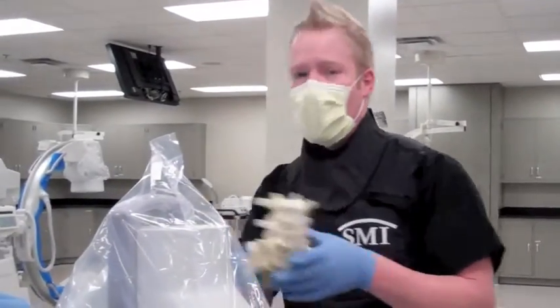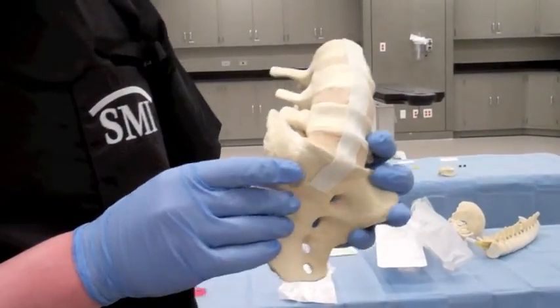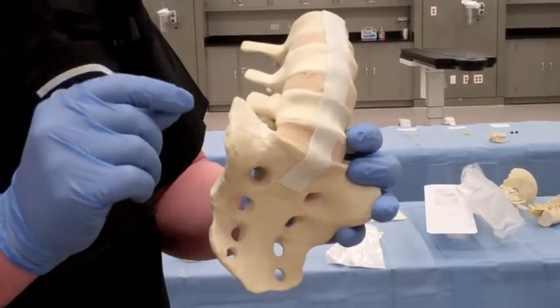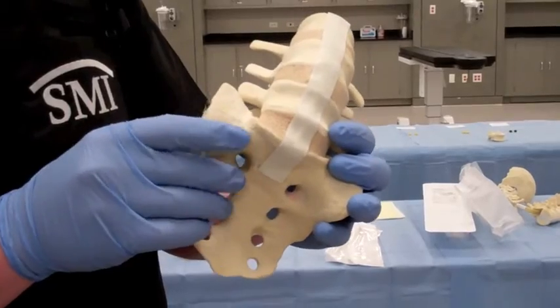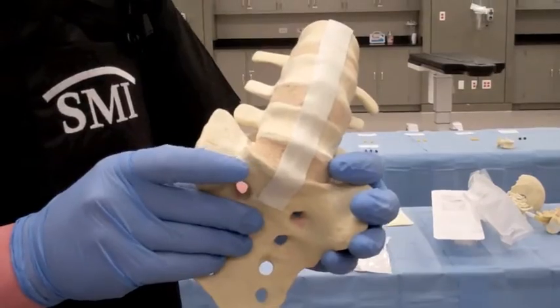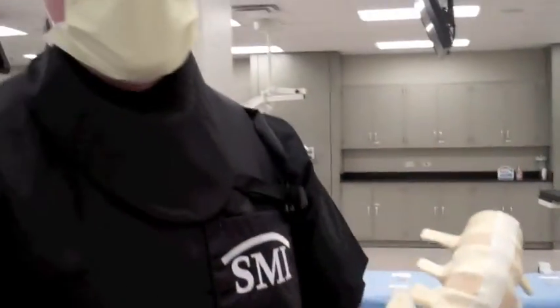I'm going to start off by explaining it on a spine model. What we're going to do in this procedure is we're going to make a small incision with a scalpel, and then place a percutaneous trocar into the disc and decompress disc material from the disc. This procedure only takes out one to three cc's of disc material, but that's usually enough to decompress the nerve root at the associated level.